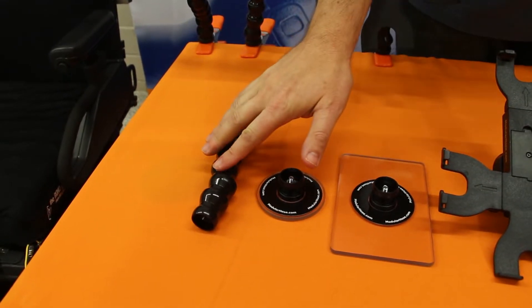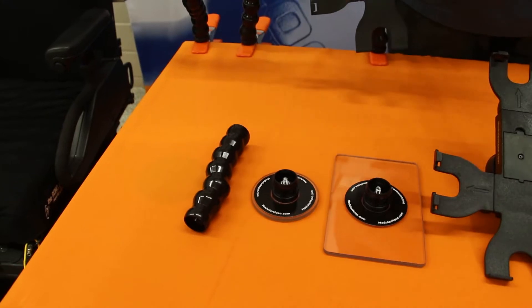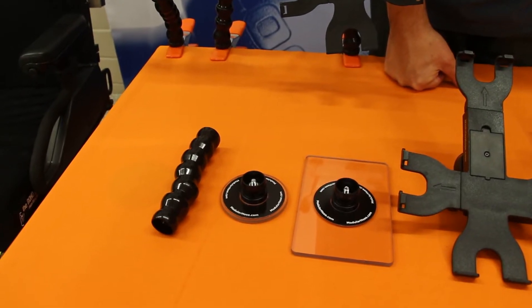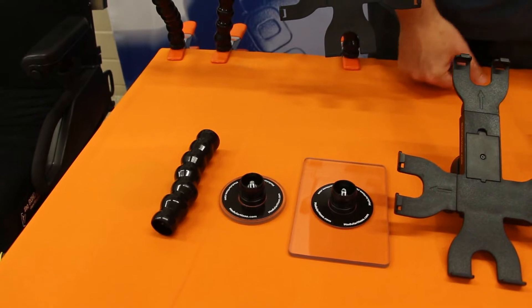The three-quarter inch is the most commonly used in the assistive technology field, and that's the size here. Any items you order, unless you specify a smaller size, you will get the three-quarter inch size. It holds the most weight and gives you the most structural support.